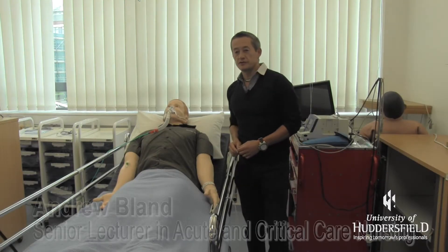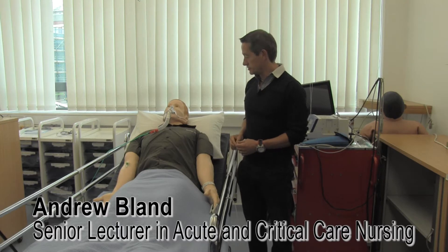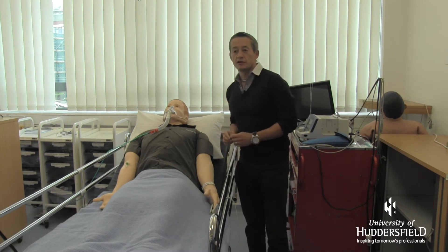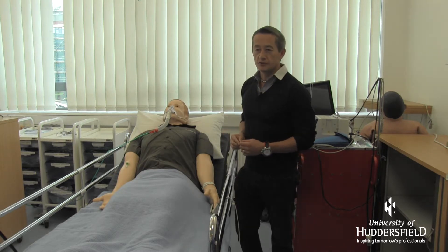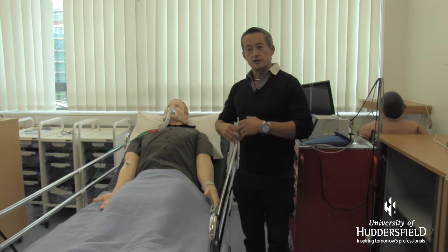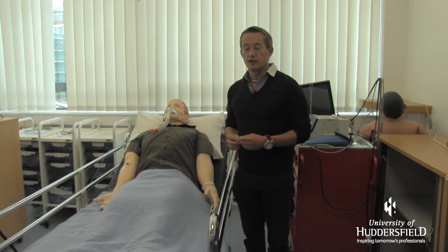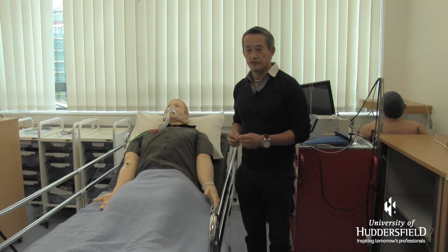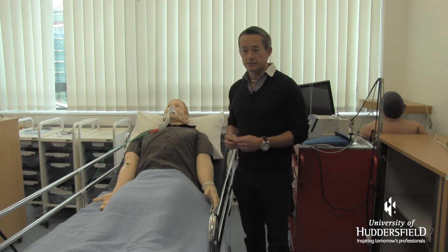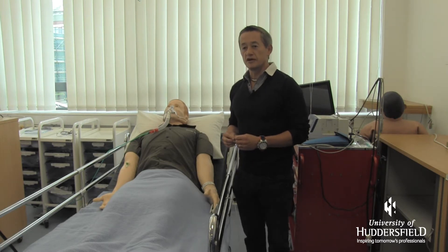This gentleman I'm about to introduce is a relatively new simulator that we've just purchased at Huddersfield and he's called SimMan 3G. Just before I talk about him, it's important to understand that simulation is not just about mannequins. It uses many different strategies, but within the School of Health Sciences here we're lucky enough to have many different types of mannequins that basically replicate real human beings, and they come in different levels of technology — we refer to that as fidelity.